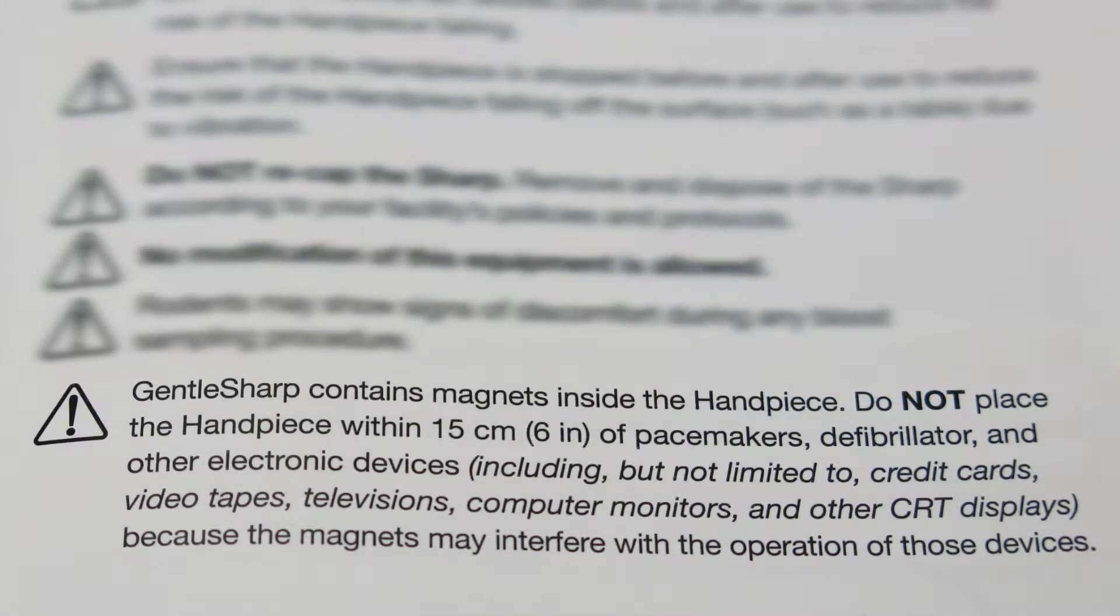GentleSharp contains magnets inside the handpiece that can interfere with the operation of certain devices. Therefore, do not place it within 15 centimeters or 6 inches of pacemakers, defibrillators, and other electronic devices. This also holds true for credit cards, videotapes, televisions, computer monitors, and other CRT displays.